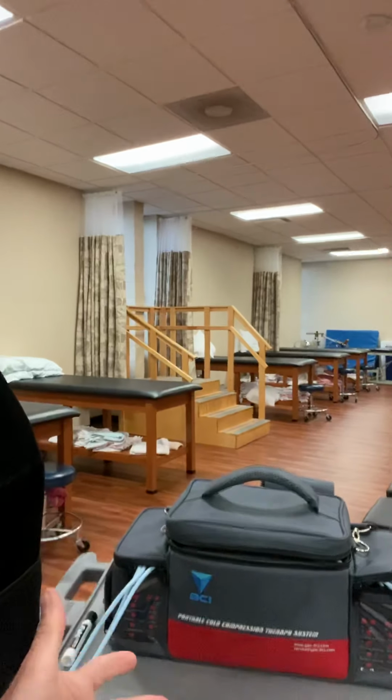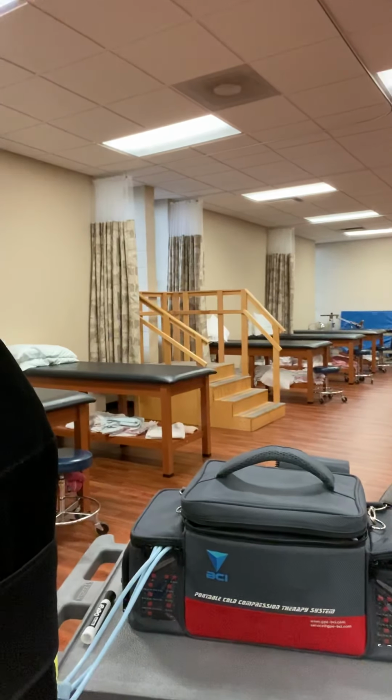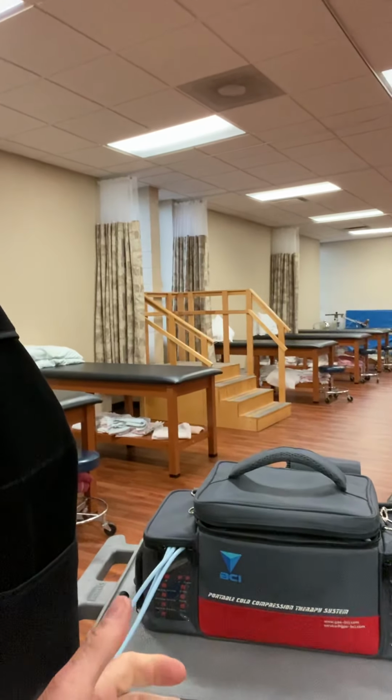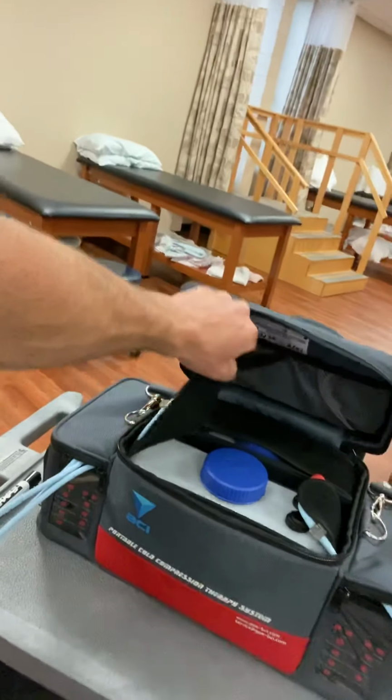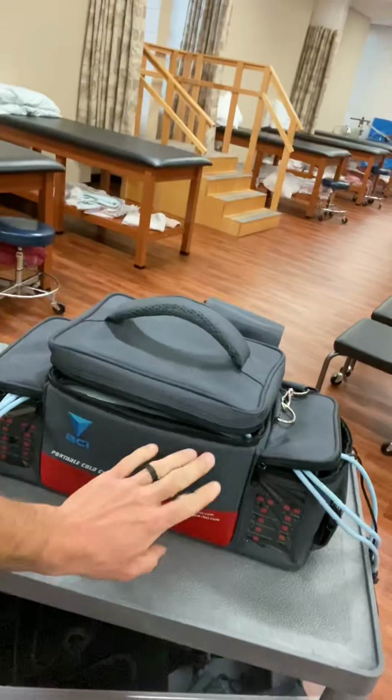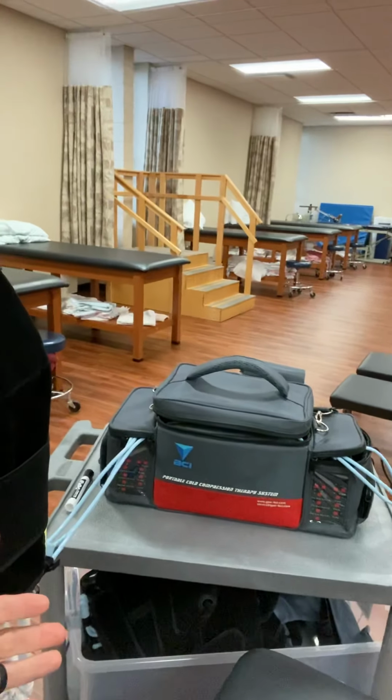This is a rock star among therapy systems for compression, because this little guy right here, I can put ice and water in this little machine right here, and I can introduce cold with my compression. Now, we talked about how there was an acute hospitalization setting for compression, but this little guy right here is like the bomb.com when it comes to compressing an acute injury. Acute injury, acute hospitalization, two different things.